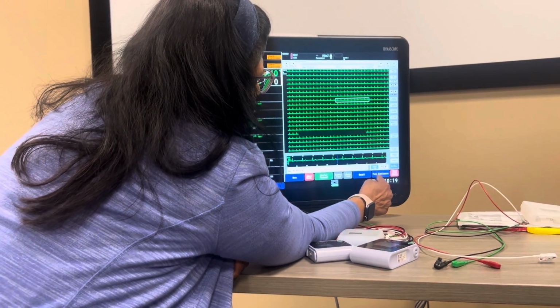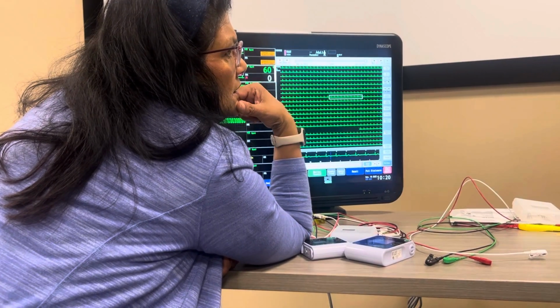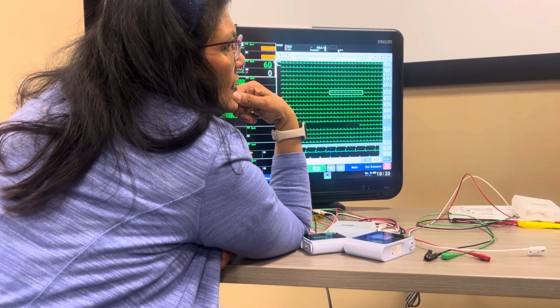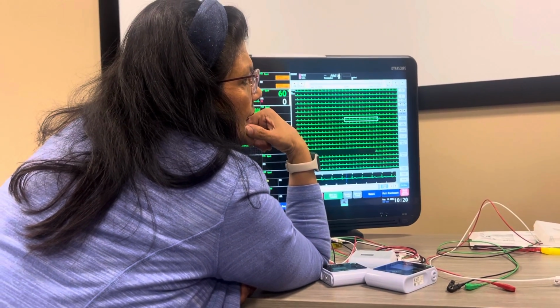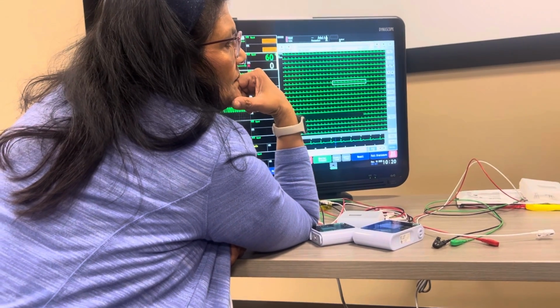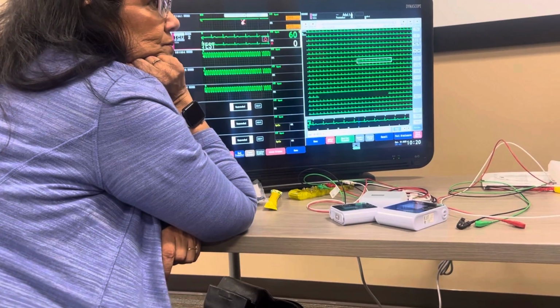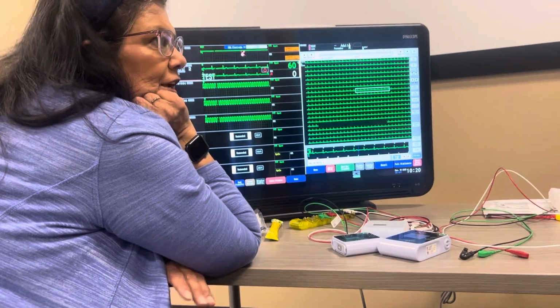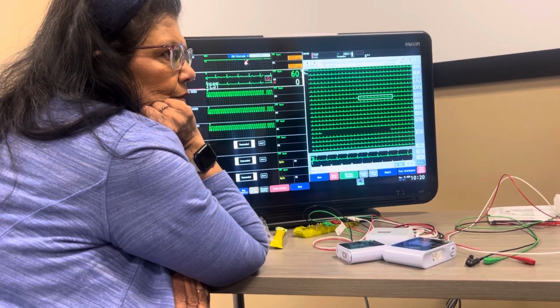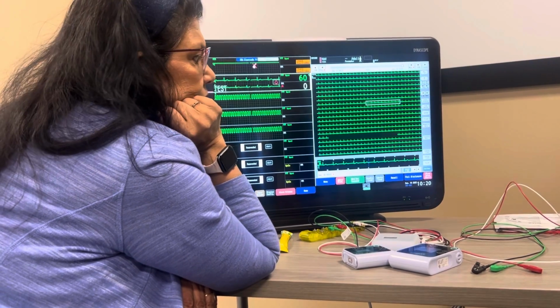Any questions on full disclosure and recall? Does this link up with EasyVet? Like, instead of printing it out, if they wanted it on file, like scanning it in, is there a way to transfer, like if there was an event, the imagery into EasyVet? Yeah, we are capable of doing that, but right now I don't think you guys bought that one, so probably in the future they'll look into that.